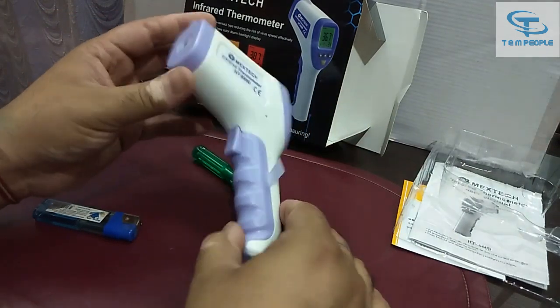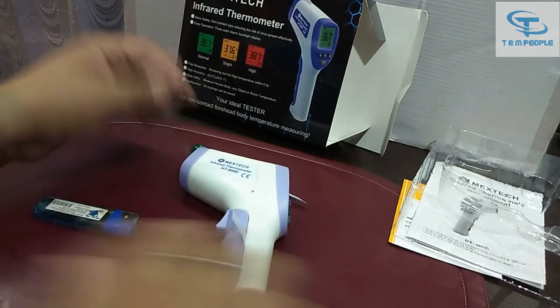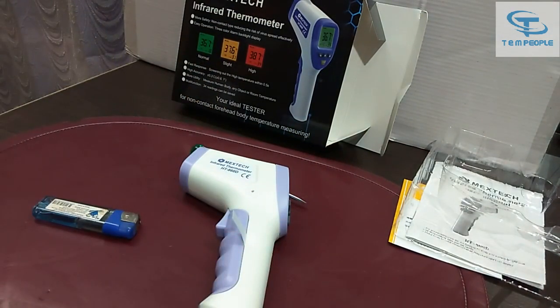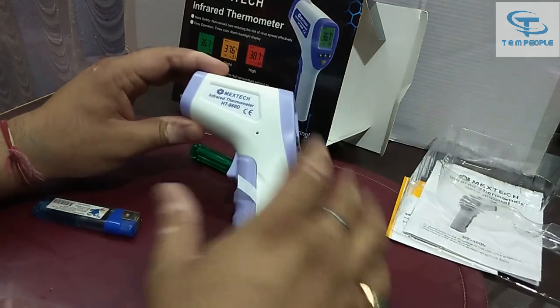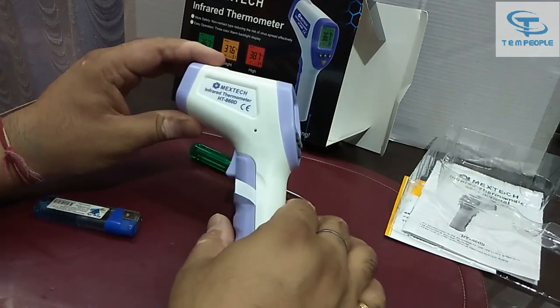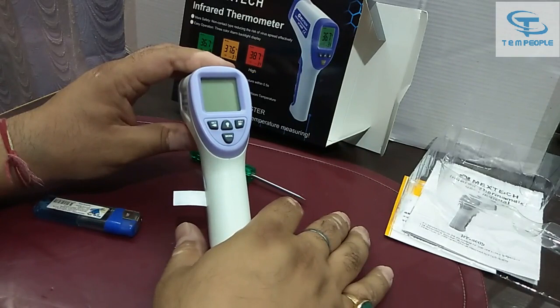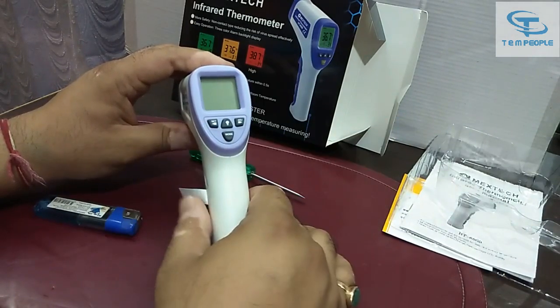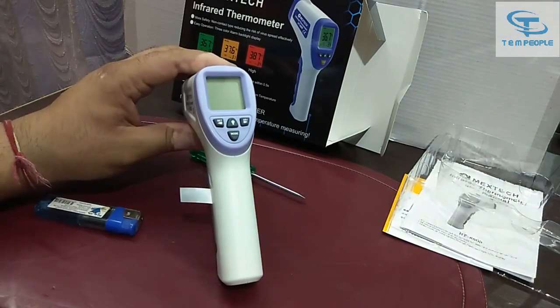So that's the demonstration. I tested it for some time and I'd say this is a decent meter. The temperature sensor is good, the colored LCD indicators are working well, and you get the different color feedback correctly for different temperature readings.